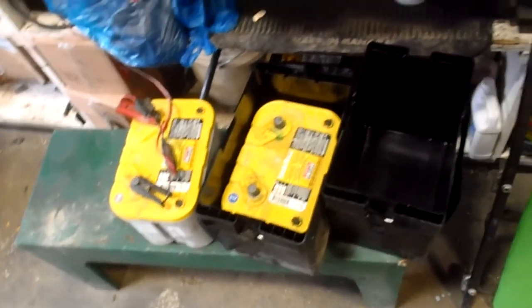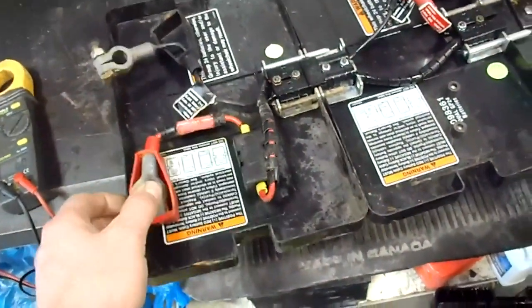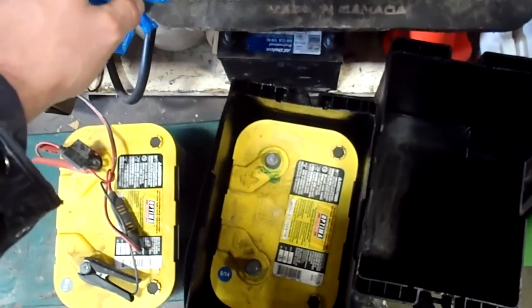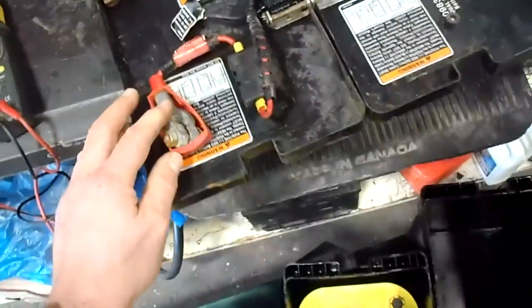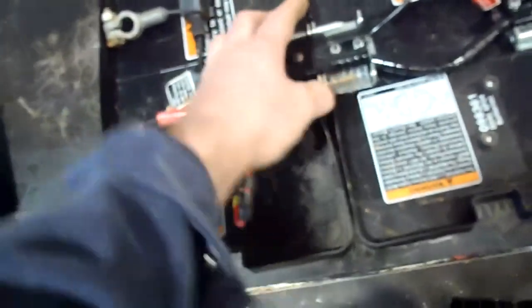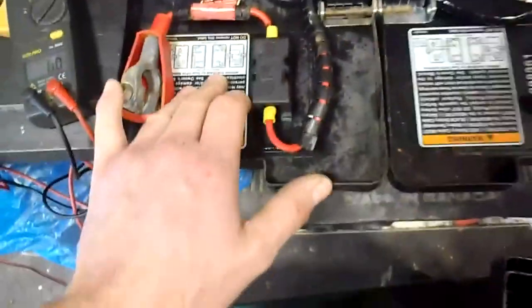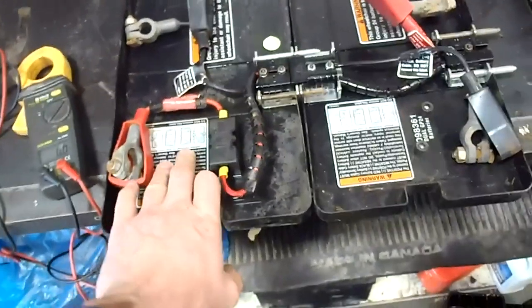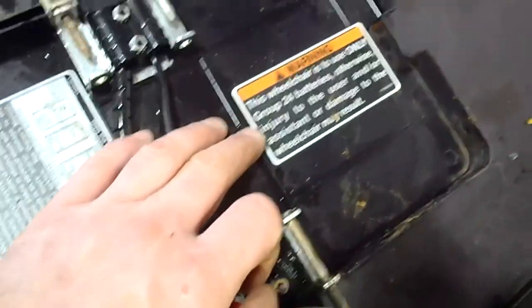I'm putting these Group 24 batteries in the boxes. They're a little bit shorter, so there'll be more room at the top of the box. The caps go on and you hook the cables up to your battery. I just realized I'm going to have to turn one of them around because the cables have a bit of memory. Positive and negative — when I flip it upside down I've got my positive and negative right here. They both clip together. You hook up positive and negative to each battery, and there are diagrams inside the box. It's super easy to do — you don't need to buy the super expensive batteries from the wheelchair people.